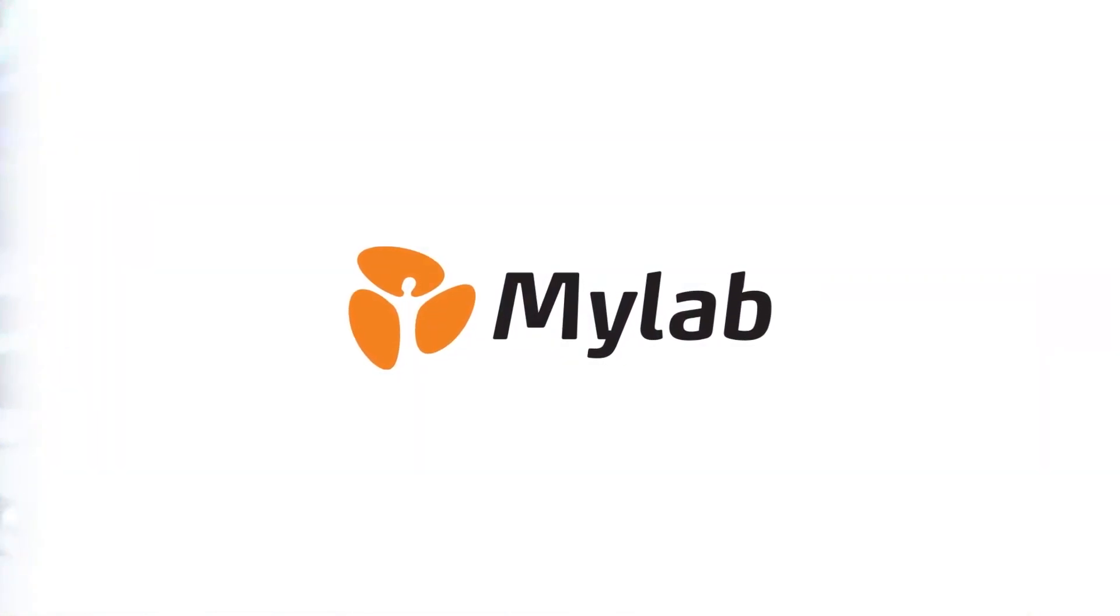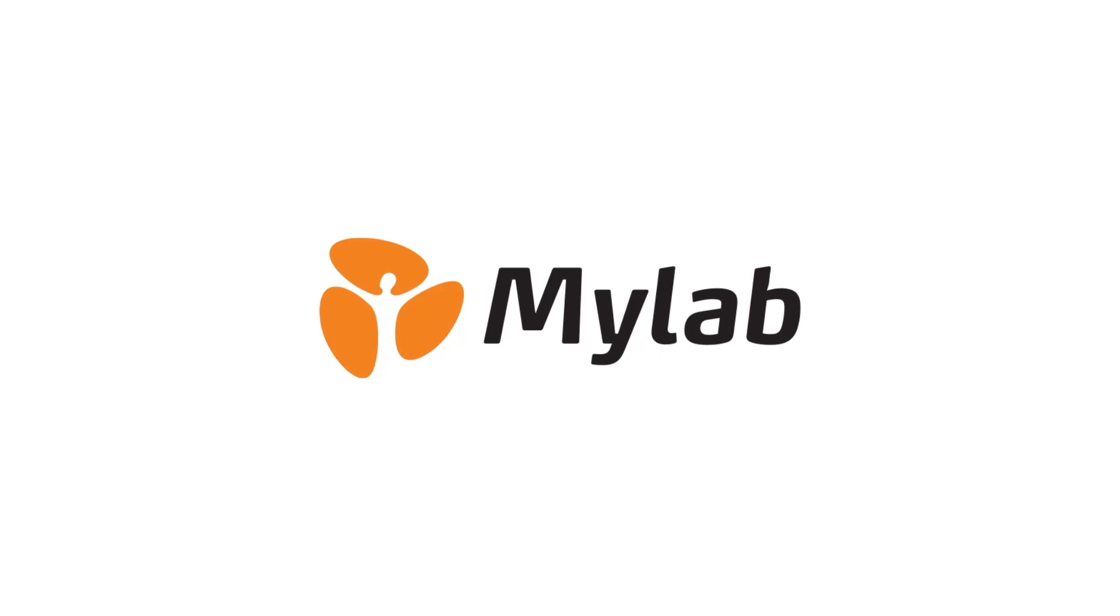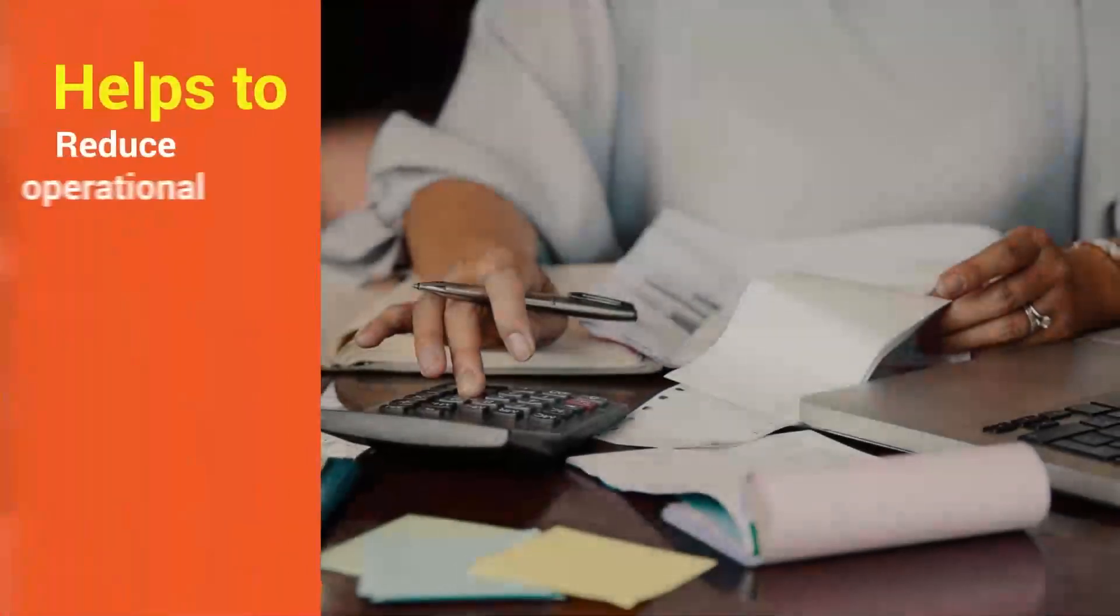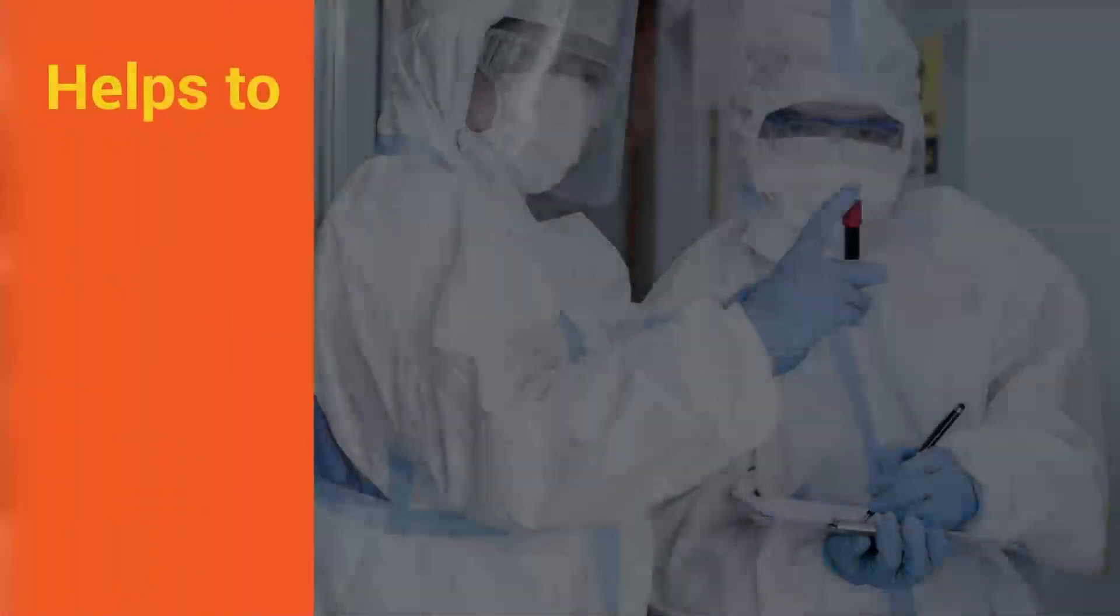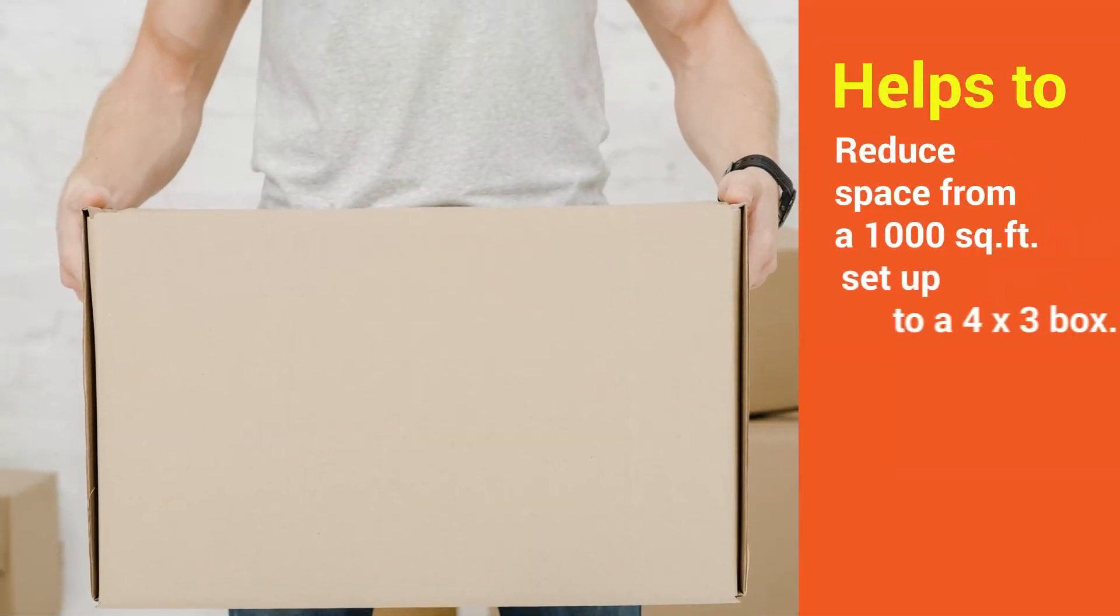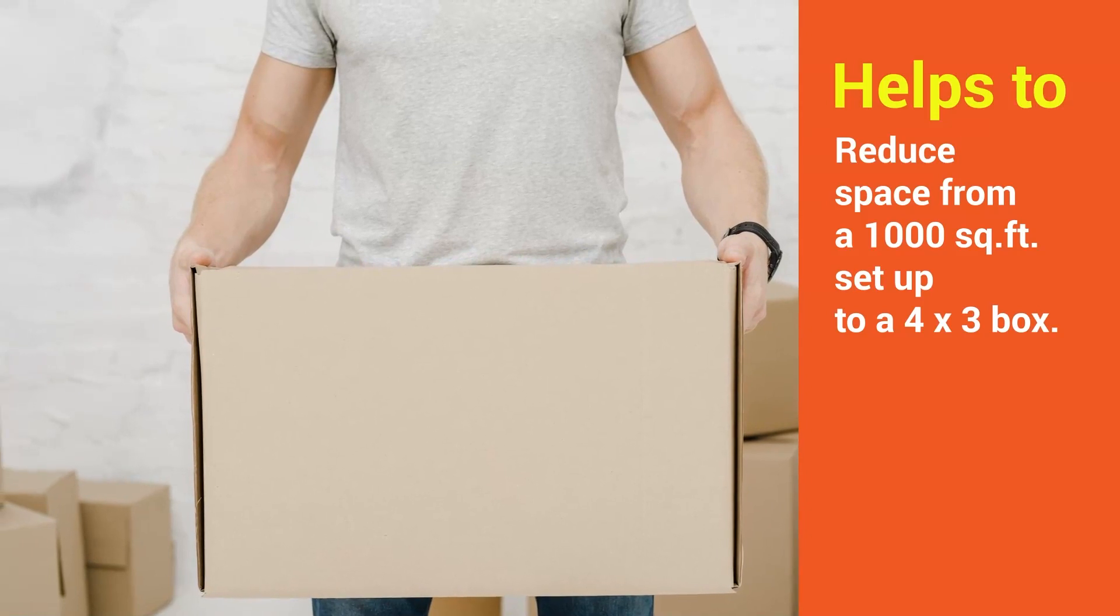MyLab Discovery Solutions now presents a breakthrough by designing a product which will minimize the requirement of multiple instruments, reduce operational costs, reduce the requirement of highly trained manpower and reduce space from a 1000 square feet setup to a 4x3 box.